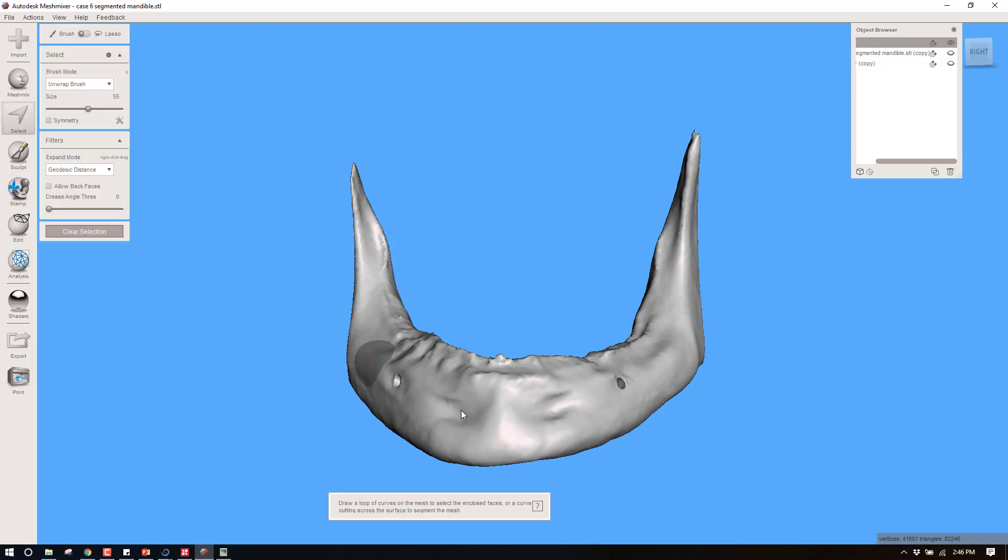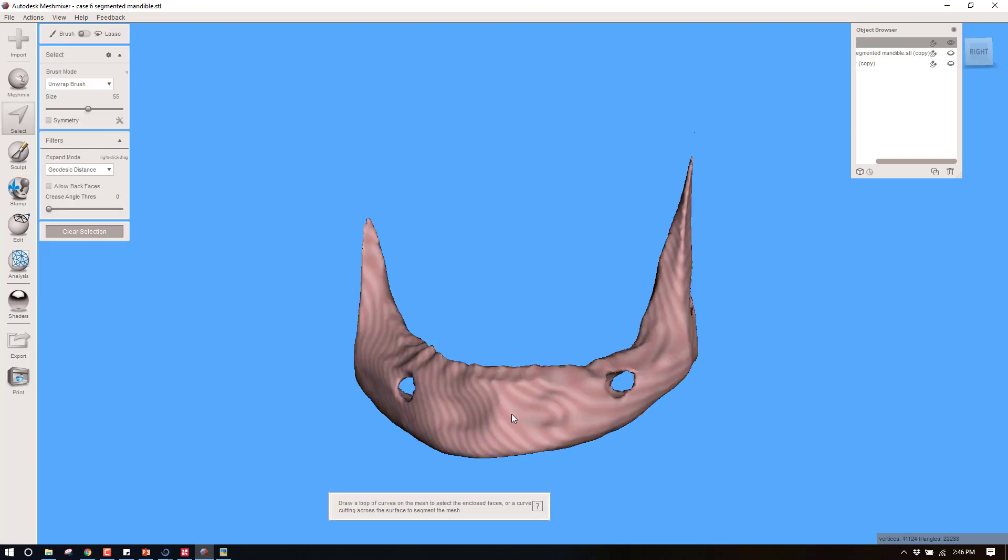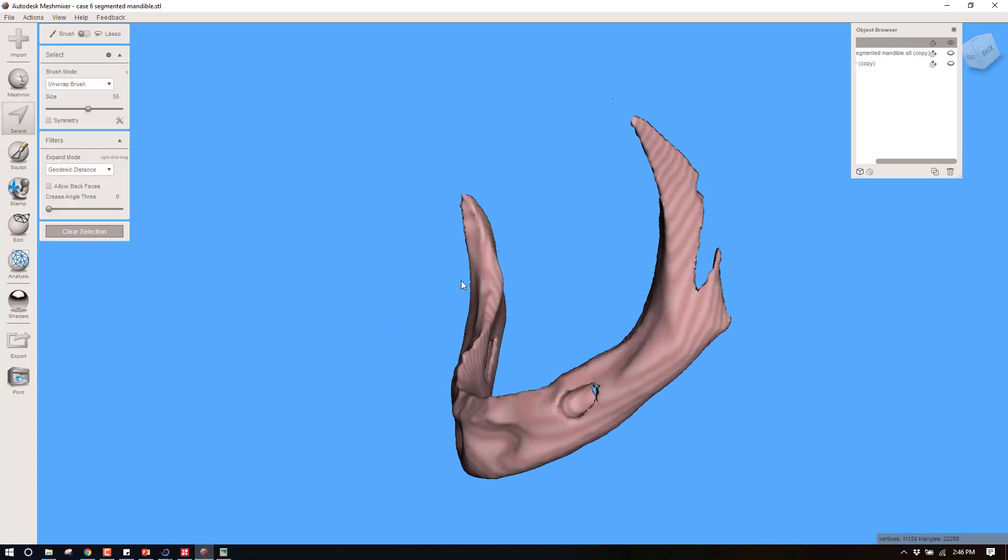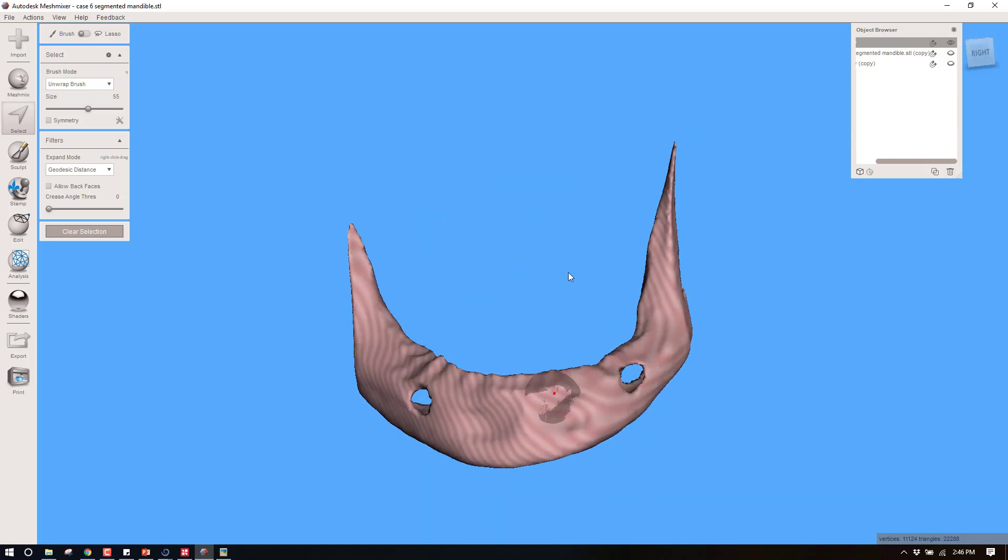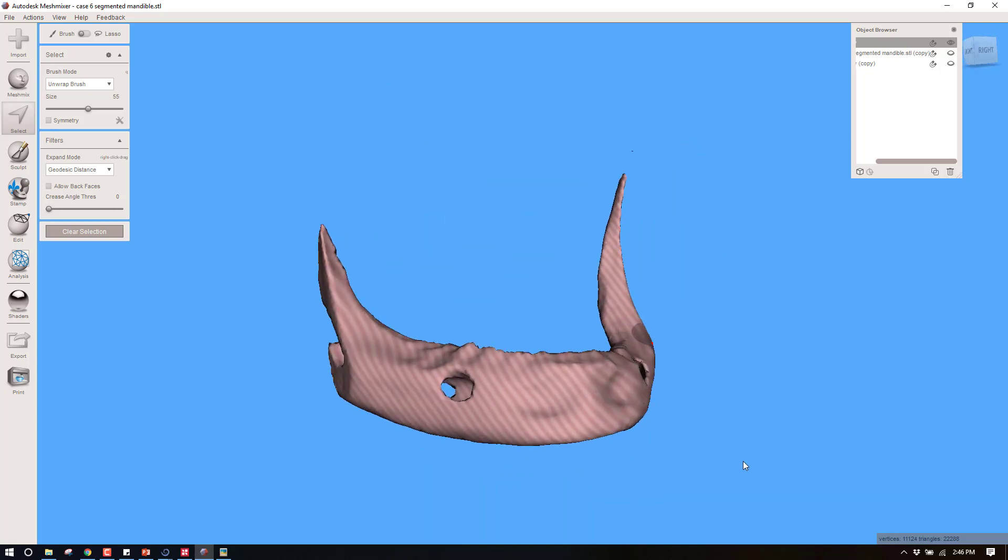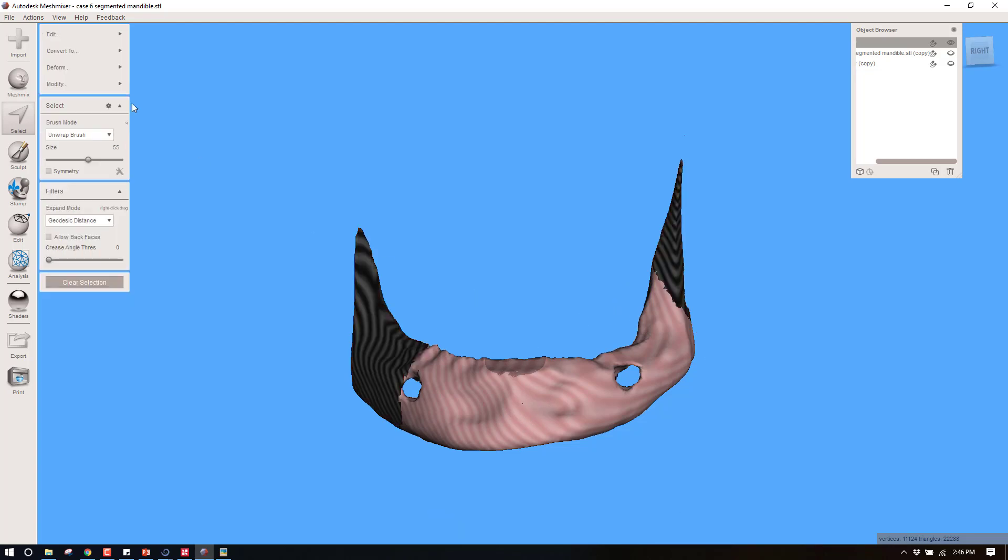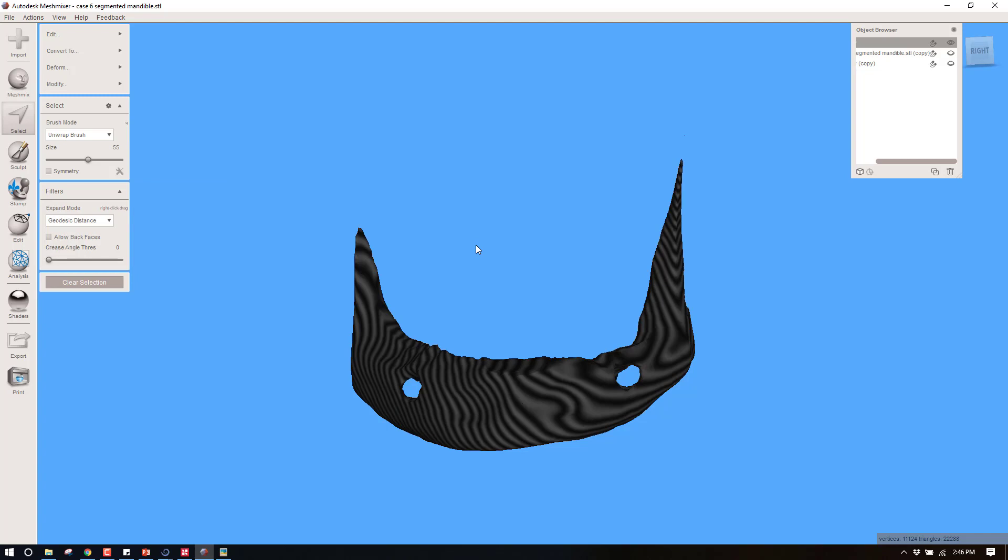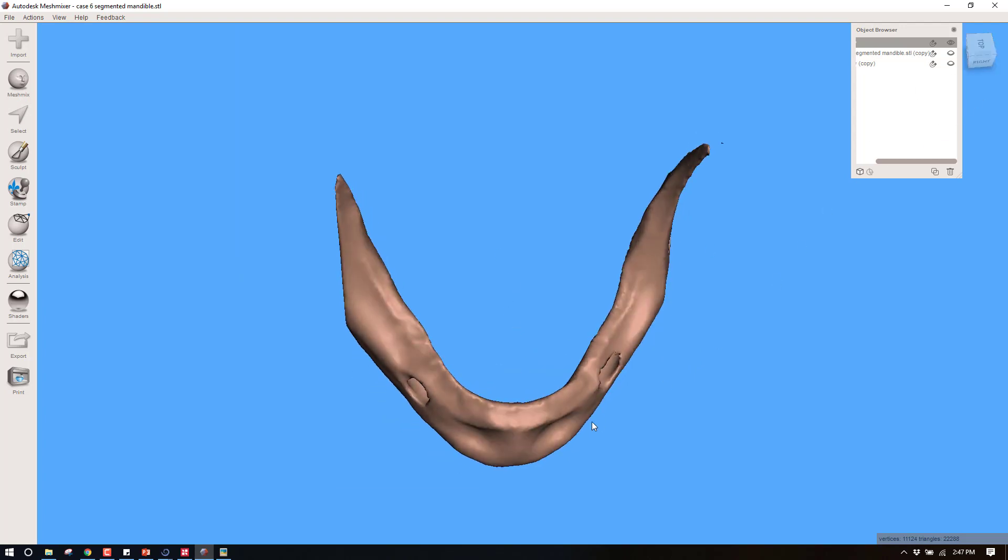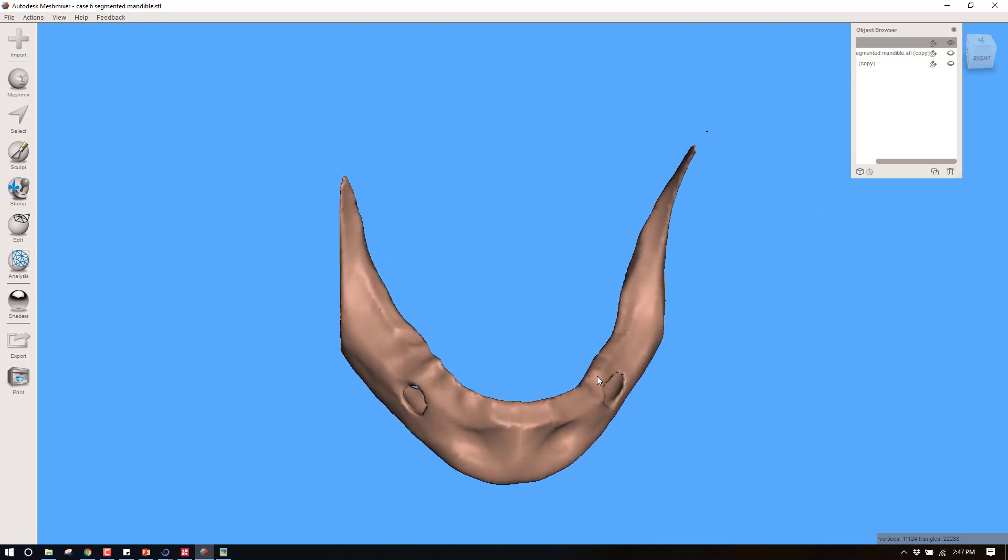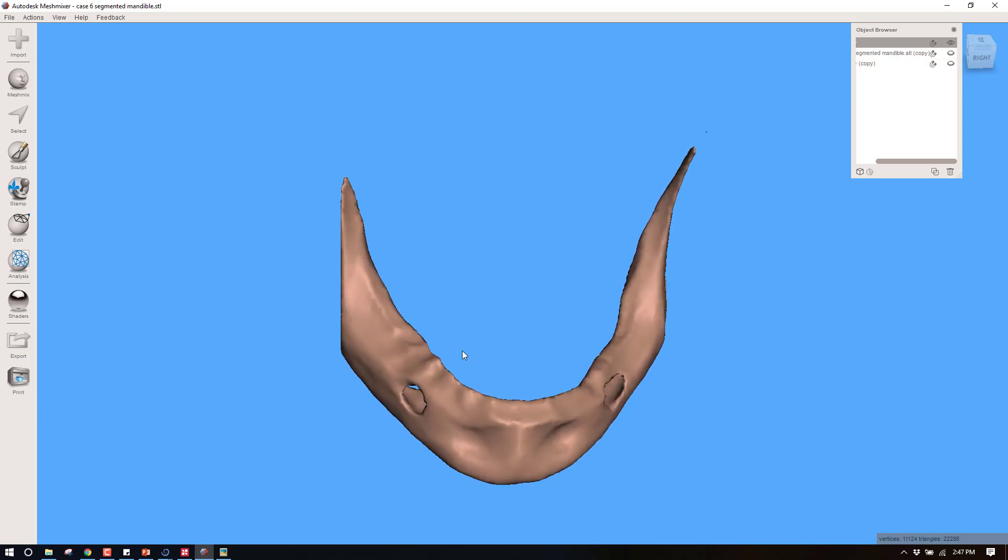What I'm going to do right now is take my select tool, double click this entire outside, and push delete. That's going to leave me with an inner shell. This is essentially the inside of the mandible, so this is all the material I could use to make cancellous space. Now I need to flip that outwards so that it doesn't have the inside as the outside. I'm going to select a little bit of this, Modify, Select All. Everything is selected right now and now I can go to Edit and Flip Normals. So now I have the part that I want to turn into cancellous, and I also have the outer part which is going to be a two millimeter cortical boundary.